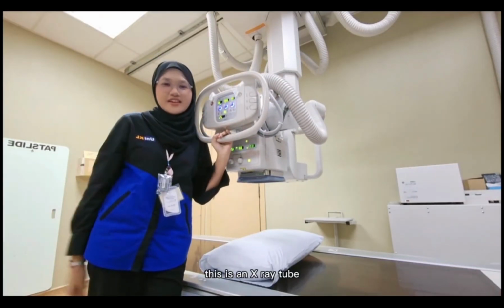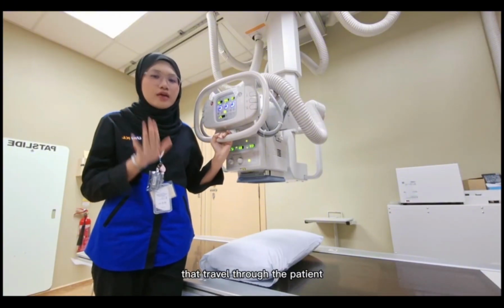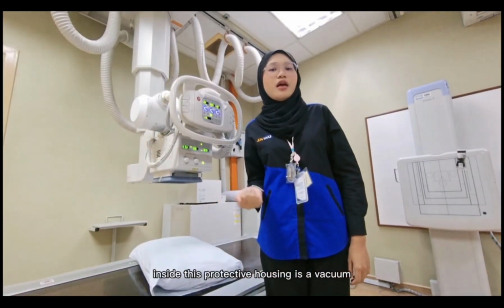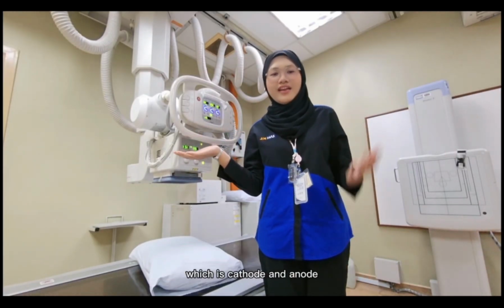This is an X-ray tube, the component that is responsible for generating the X-ray beam that travels through the patient to create an image. Inside this protective housing is a vacuum. There are two main components inside this tube, which are the cathode and the anode.